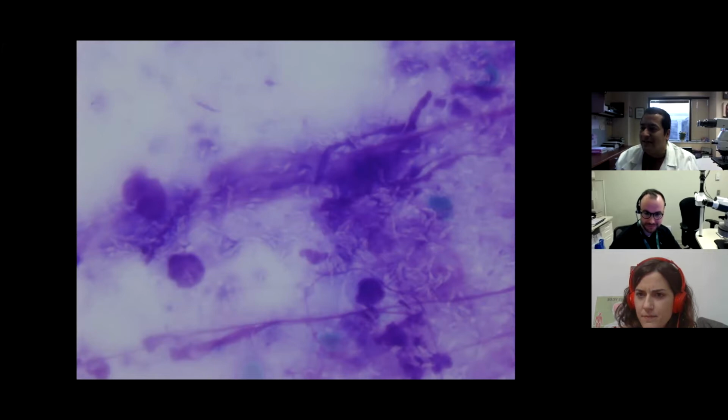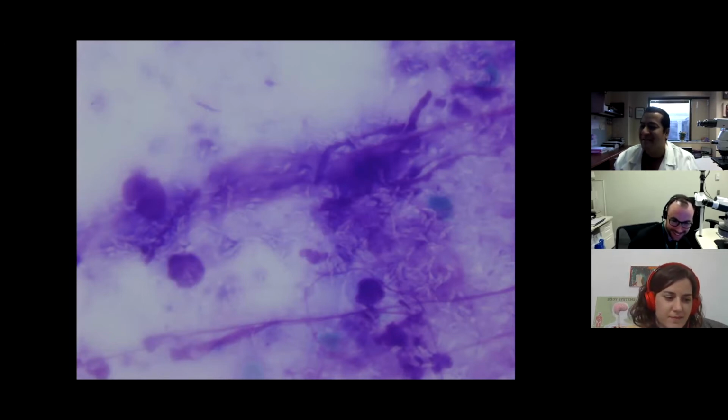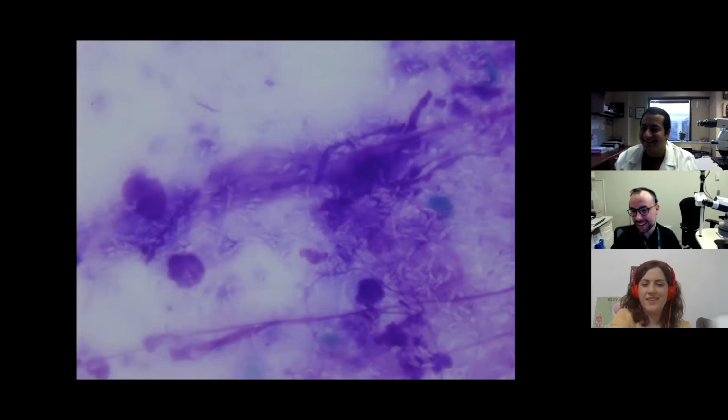What are we seeing here? What is the diagnosis from this? Again, this is cytology trivia, so sorry to dump it on you guys. I don't know. We have to learn. You are making me study. I'm going to study cytology after that. Yeah, I don't know, Sanjay.